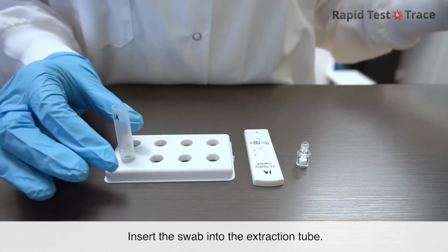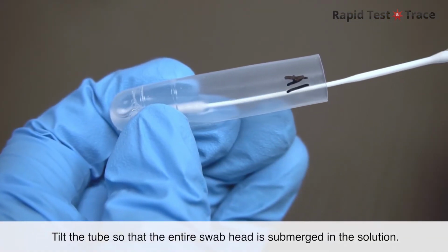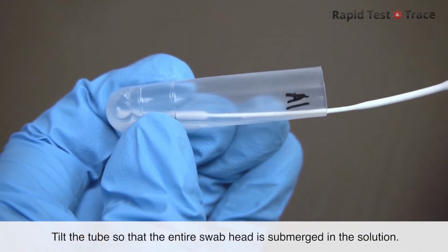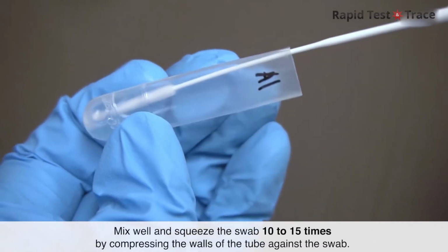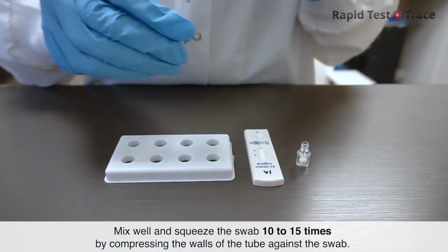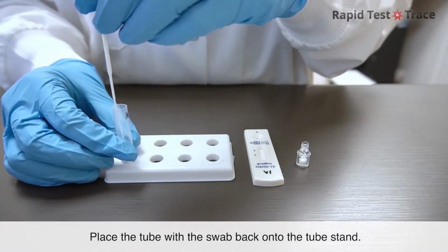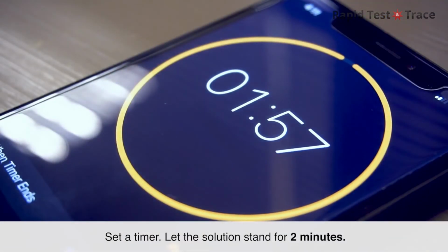Insert the swab into the extraction tube. Tilt the tube so that the entire swab head is submerged in the solution. Mix well and squeeze the swab 10 to 15 times by compressing the walls of the tube against the swab. Place the tube with the swab back onto the tube stand. Set a timer. Let the solution stand for 2 minutes.